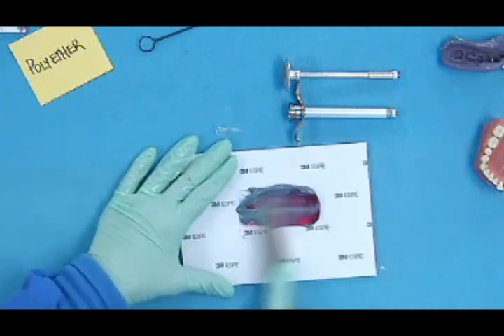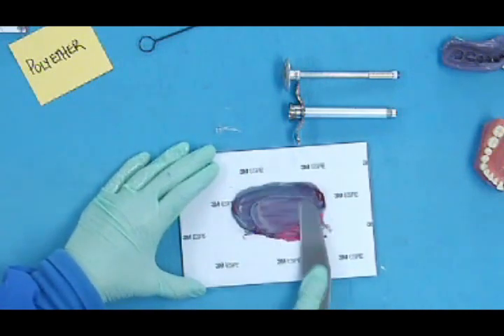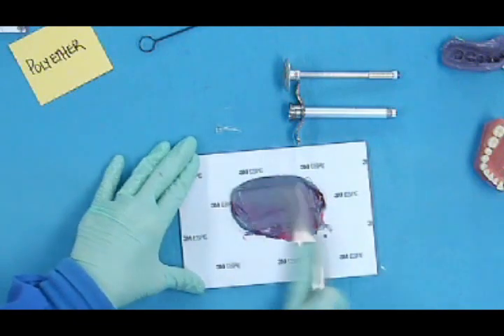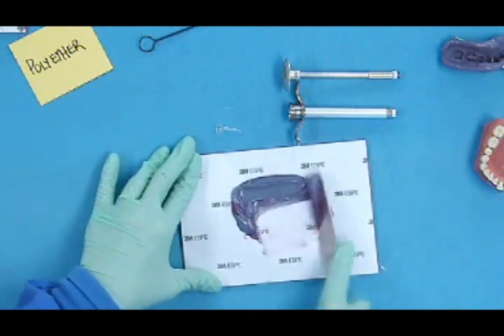Again, I'm going to mix it the same way. These pads have a loose edge, so if you hold the pad down to the table by the loose edge, you don't end up making such a big mess with it.